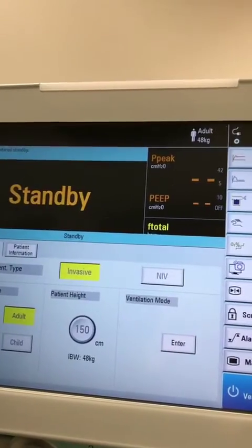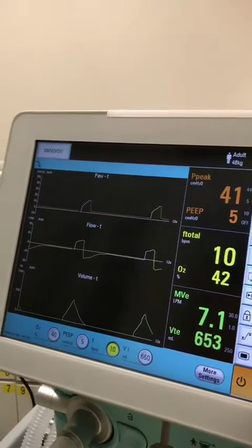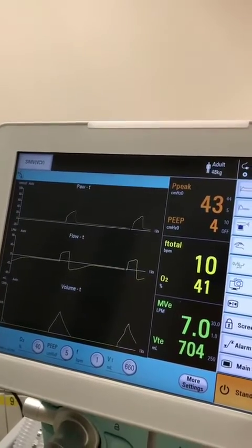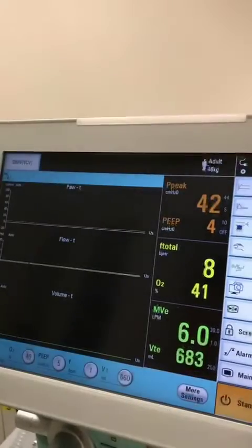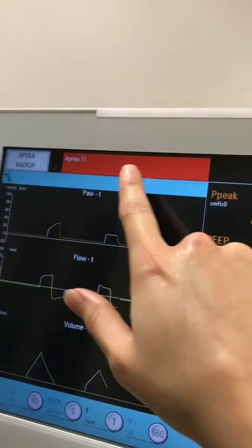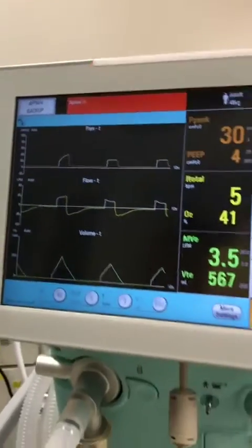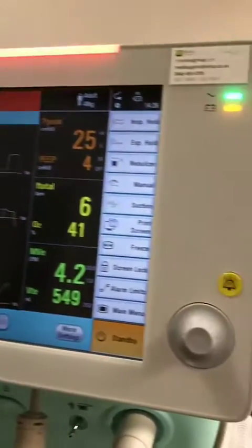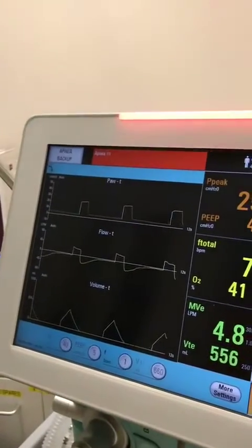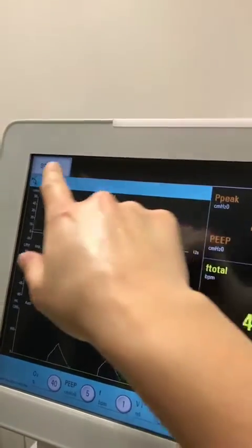Those are really important features, and quite an important aspect is the alarm system. If I put the patient into apnea, after about 20 seconds we will see an alarm pop up. As you can see, we've now gone into apnea — there's an alarm at the top and we've moved into backup mode. To acknowledge and turn the alarm off, you would naturally press the button here. Watch what happens: it not only turns the alarm off, but it puts you back into your previous mode.